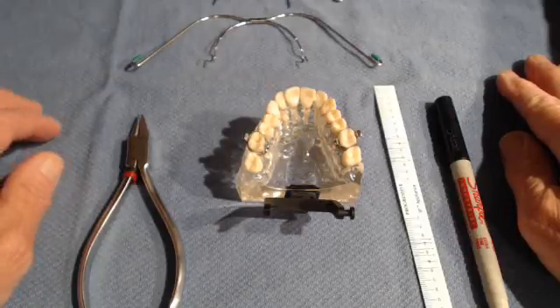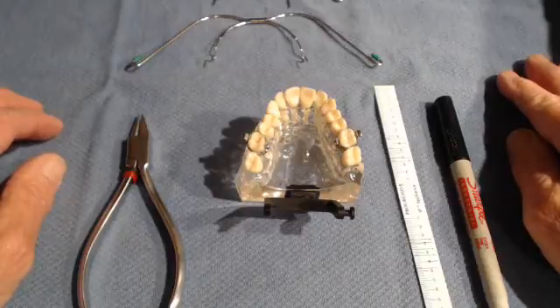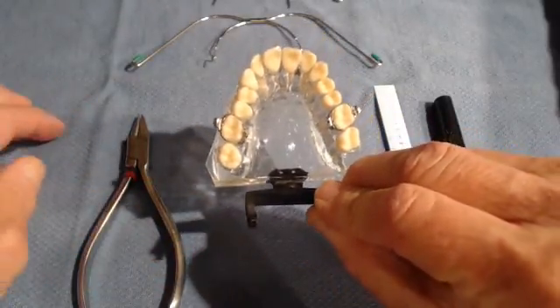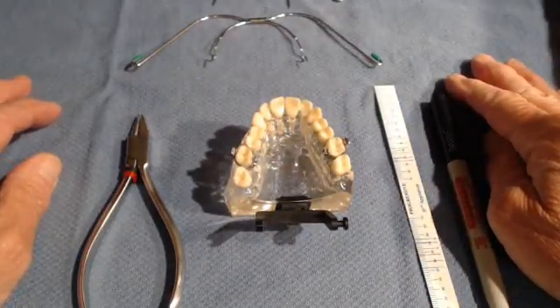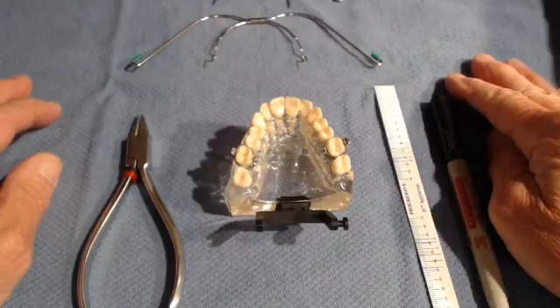The purpose of this video is to discuss cervical headgear delivery on your patient. The headgear inner bow is the only thing I can demonstrate on this patient because my patient does not have a neck to put the strap on to adjust the force axis. This will be covered in your seminar by your instructor in session seven and also in session four.